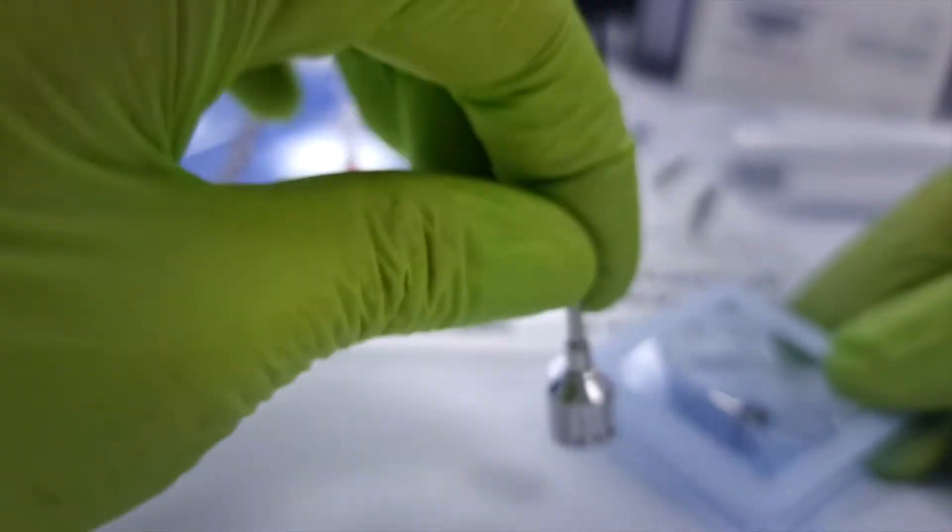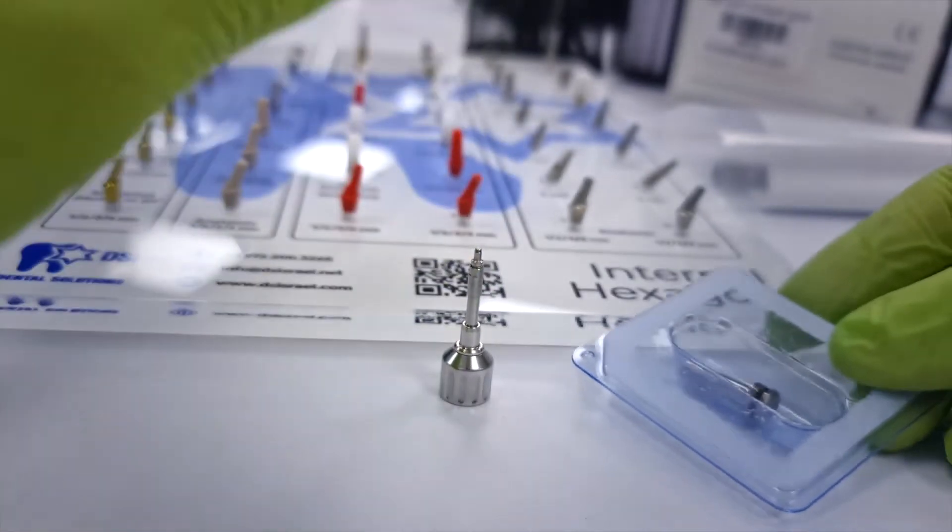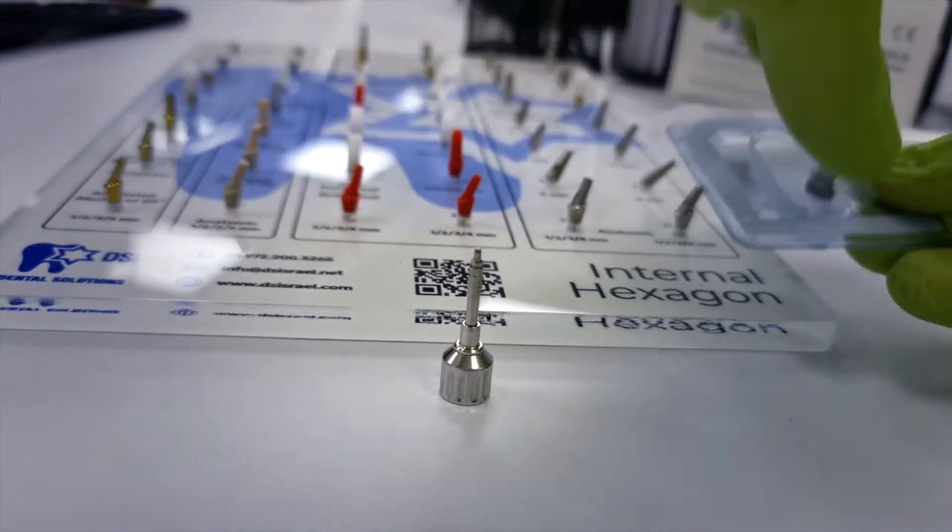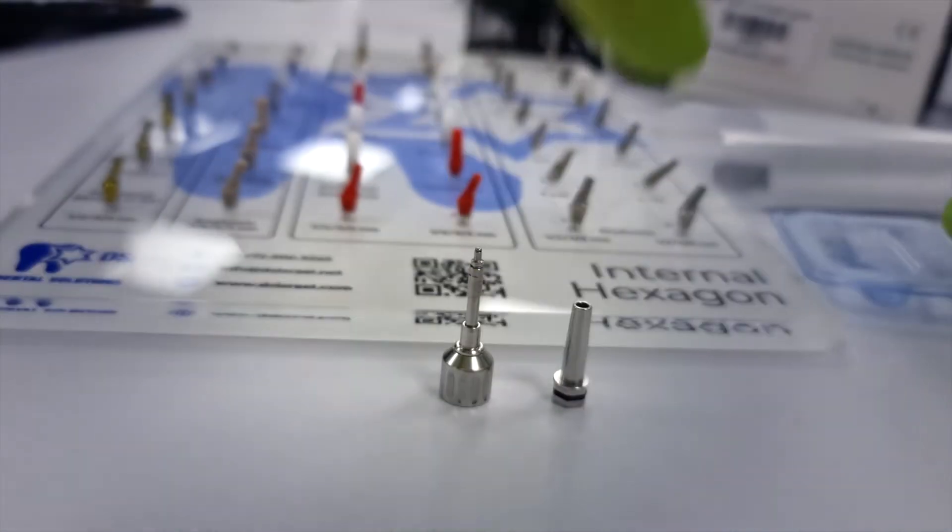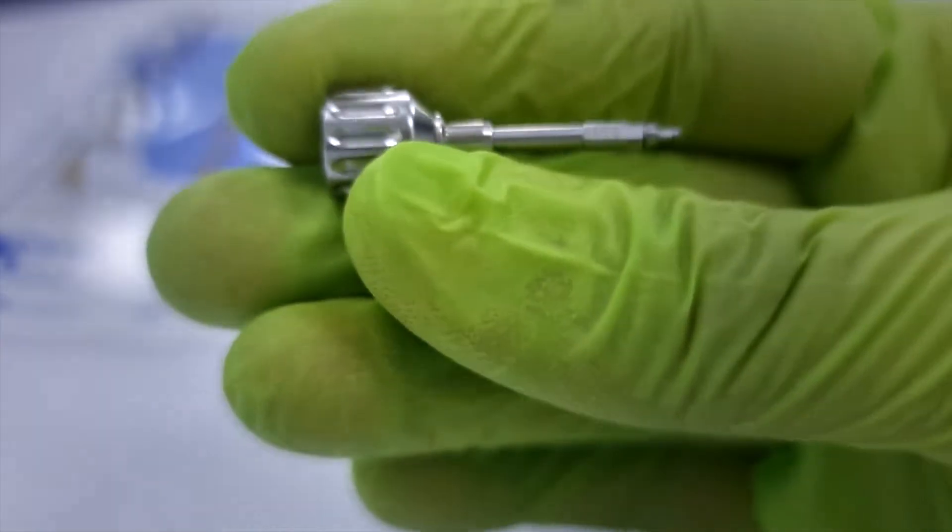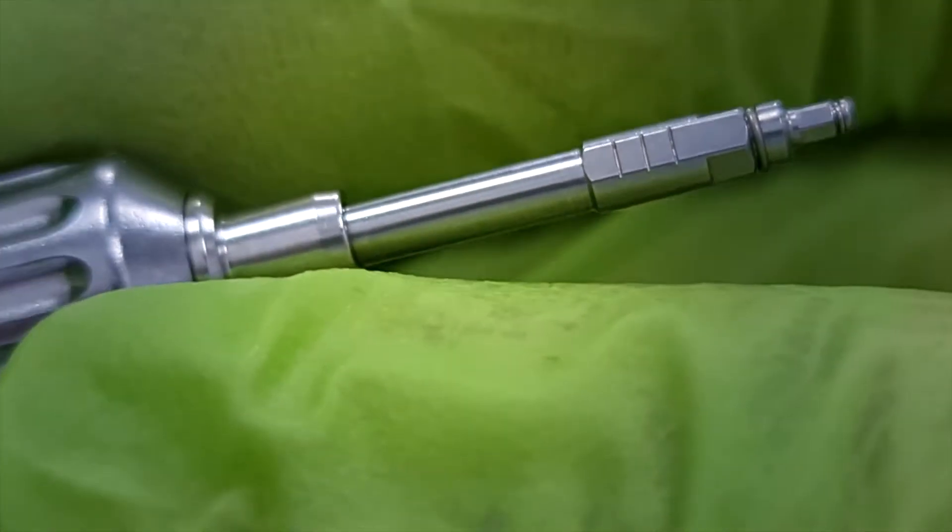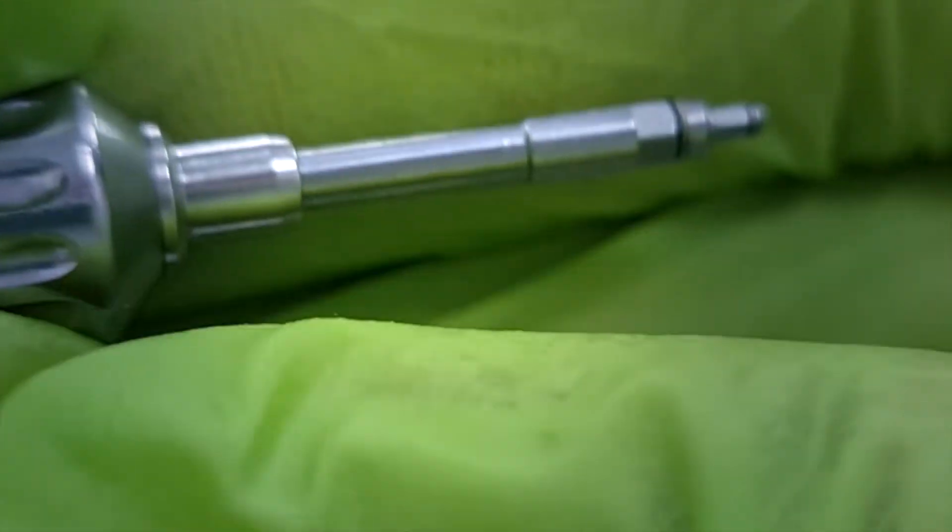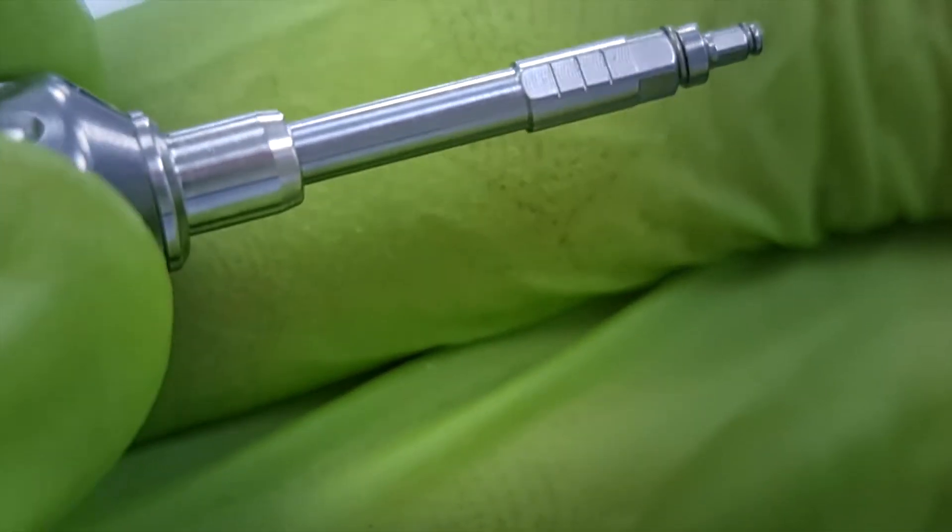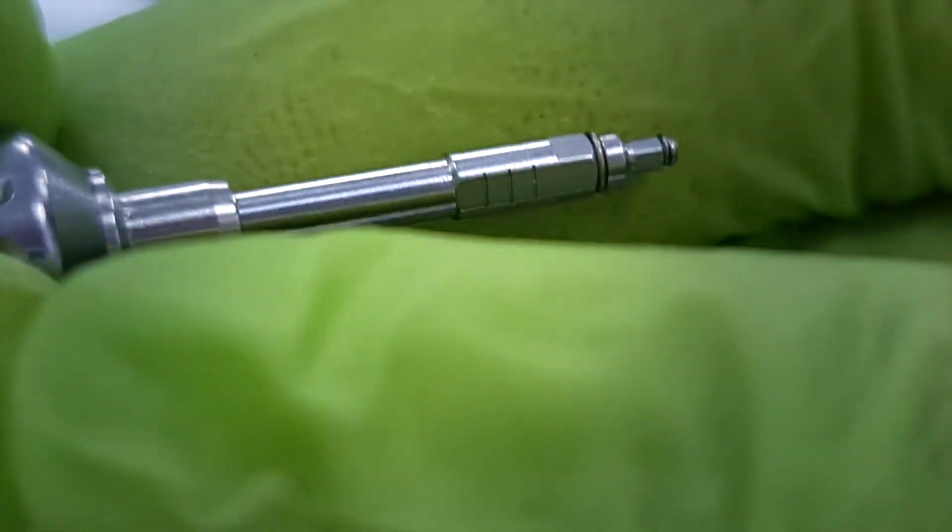When we look closer, you understand what's so unique about this tool. It has the special stepped design where the first diameter is for the implant and second one for the prosthetic. At the tip, both of them are secured with the micro coil for firm grip that fixates and secures your part on the driver no matter how heavy it is.